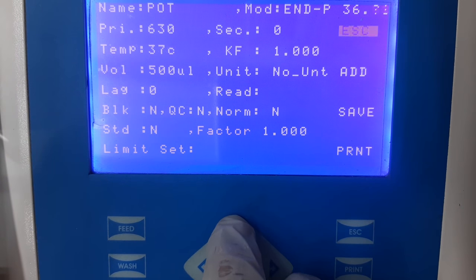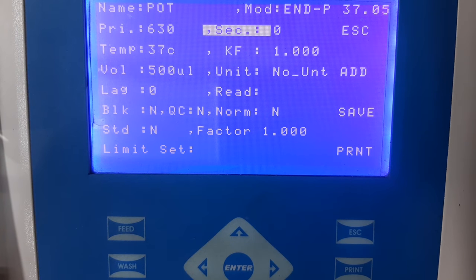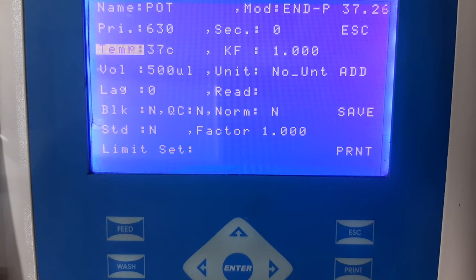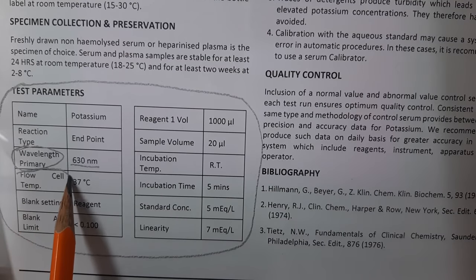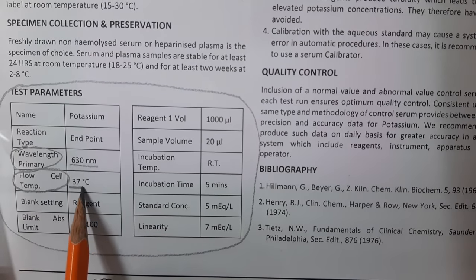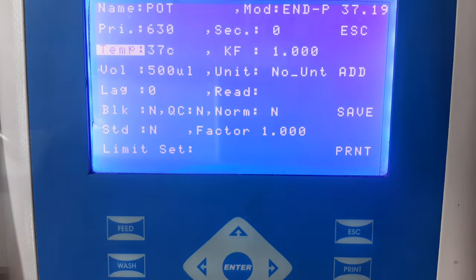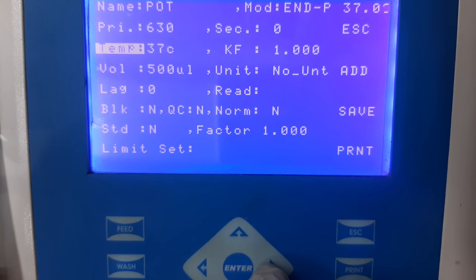The next information that needs to be added is the secondary wavelength. Because the manufacturer has not given any information about secondary wavelength, you can leave this option blank. The next information that needs to be added is the temperature or flow cell temperature. This information can be seen in the instructions for use. Because the default temperature mentioned is 37 degrees Celsius, we can leave this option and go to the next.